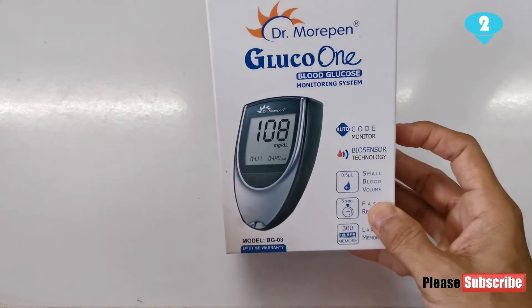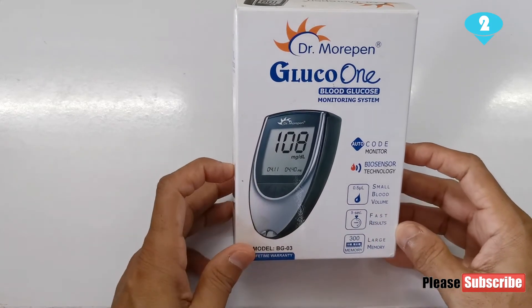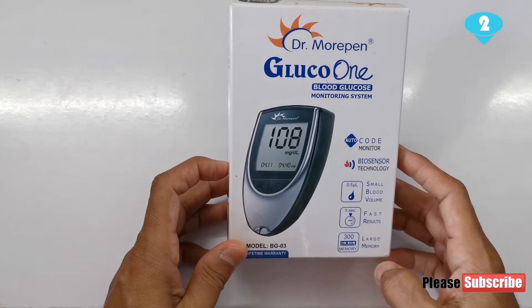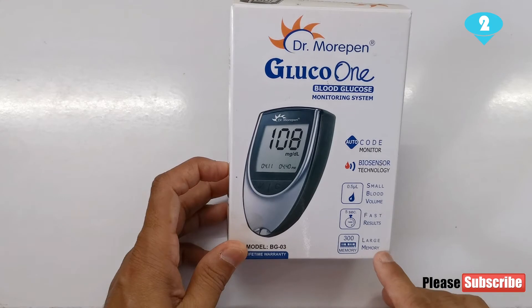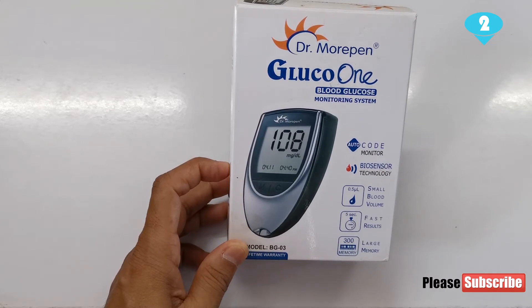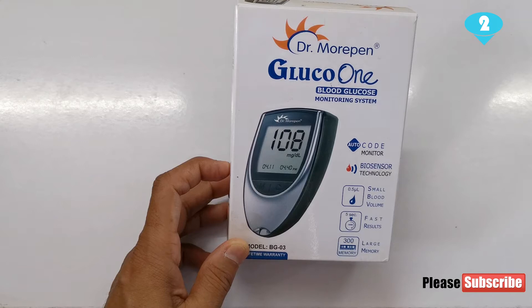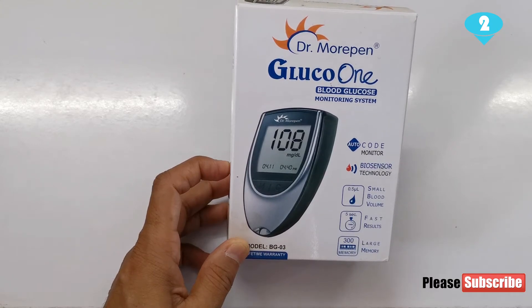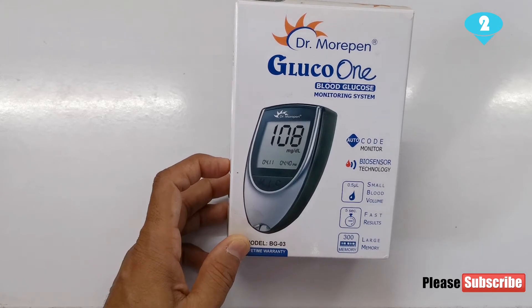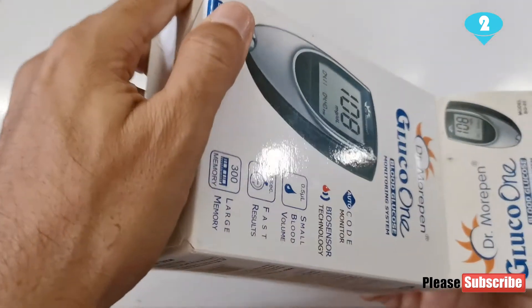The model I have right now with me is the Dr. Morpen's Gluco One blood glucose monitoring system. It also says it has a capacity of storing 300 readings — 300 memory, large memory. To ensure we are making the best use of this feature, it's very important that we set the date and time correctly on this machine, so that whenever we need to go back and check our readings we will know on which day we had done the last monitoring, what our readings were in previous times, and how things have been over a period of time.